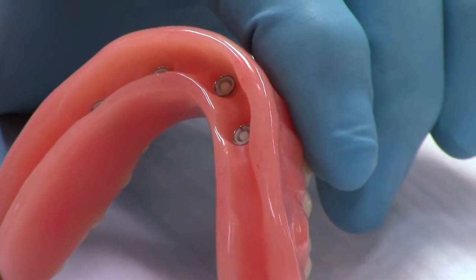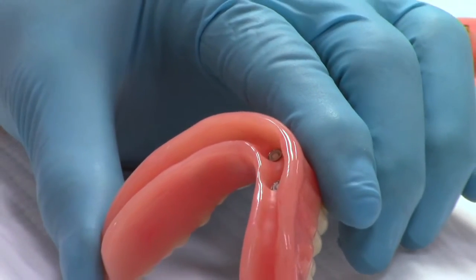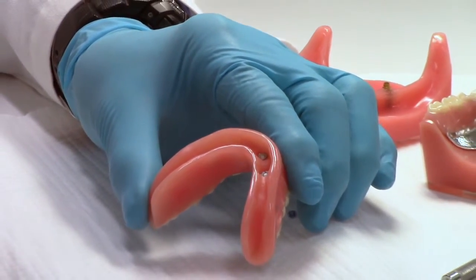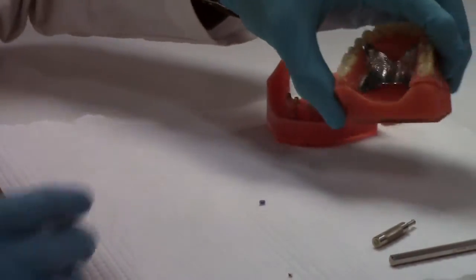You don't need to do another pickup. There's no composite or acrylic involved in doing that. So it's very quick. We say 30 seconds, but it really is even quicker than that. So that's the overdenture version.